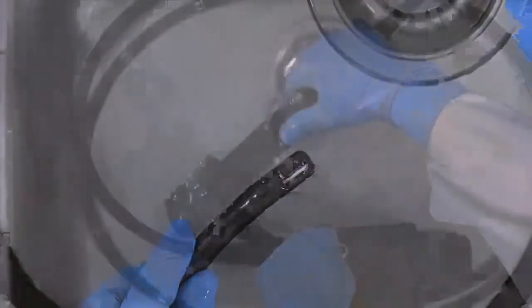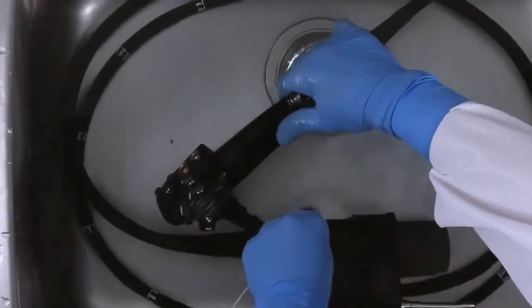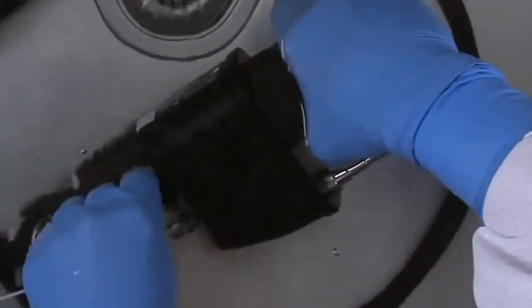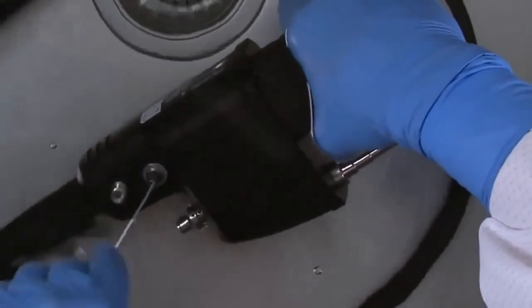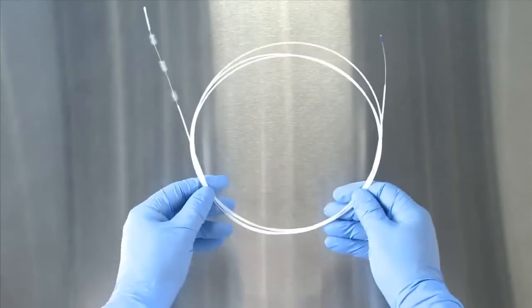If the biopsy channel is kinked or resistance is encountered at any point, do not apply force to insert or remove the brush. Send your endoscope into Pentax for repair in order to avoid potential damage. Remember that disposable brushes should only be used once.